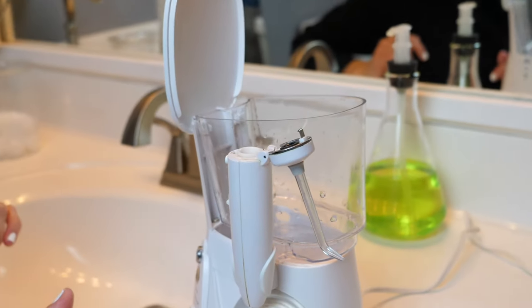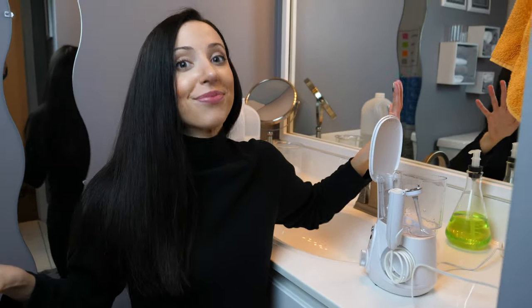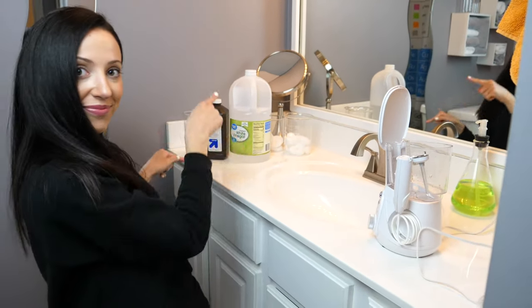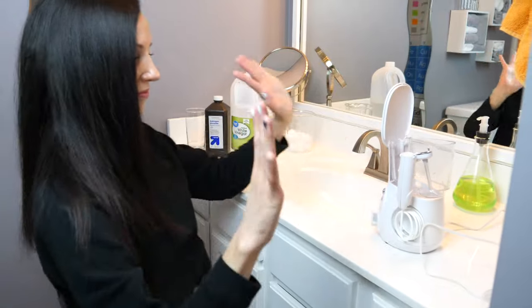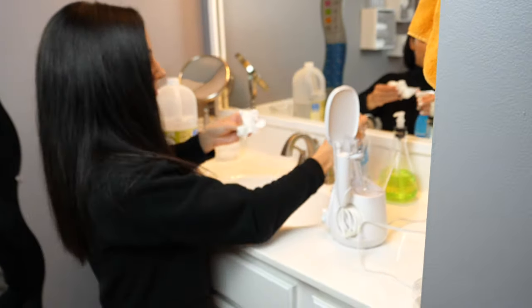Okay, so that was my daily routine. Now I have a monthly routine as well. Again, read your manufacturer's instructions. But on the one I have, it says you can do this next step every one to three months. So this is my monthly-ish routine.